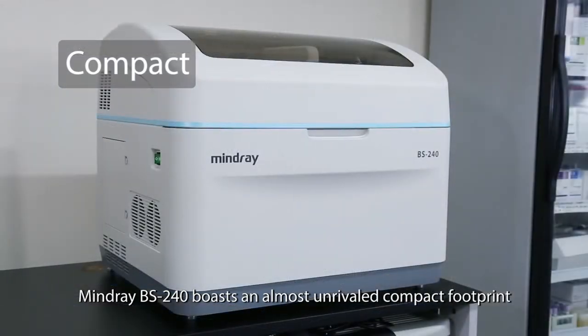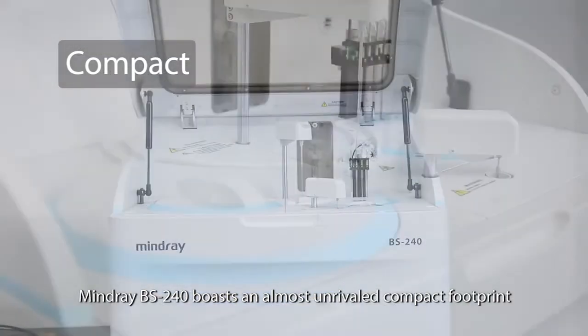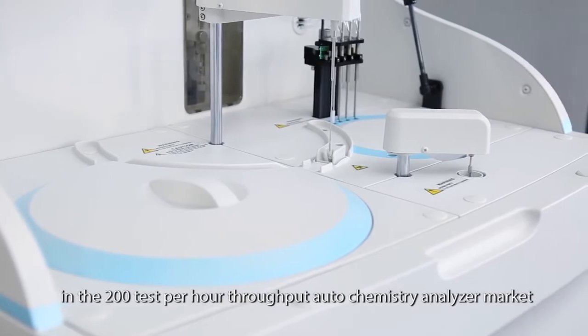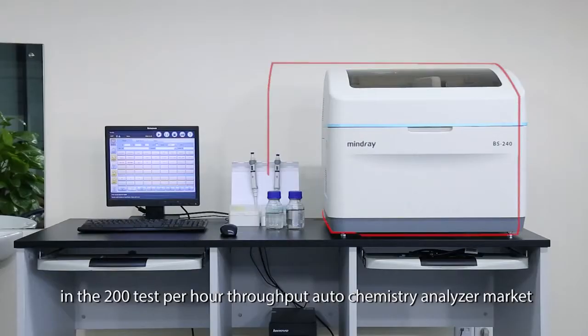Mindray BS240 boasts an almost unrivaled compact footprint in the 200-test-per-hour throughput autochemistry analyzer market.